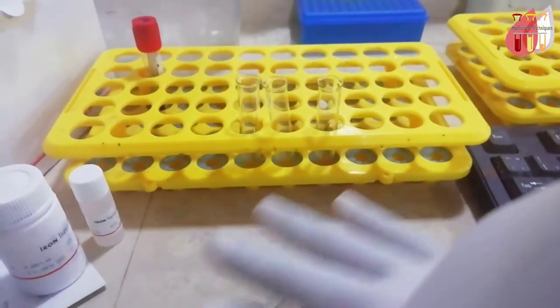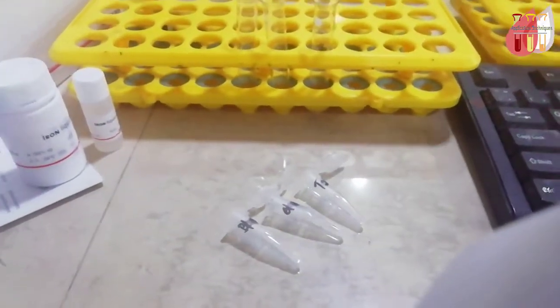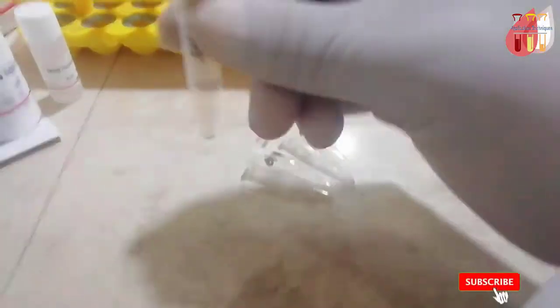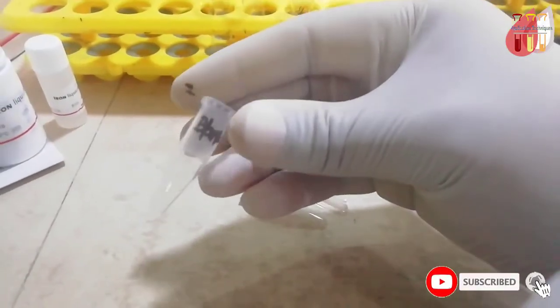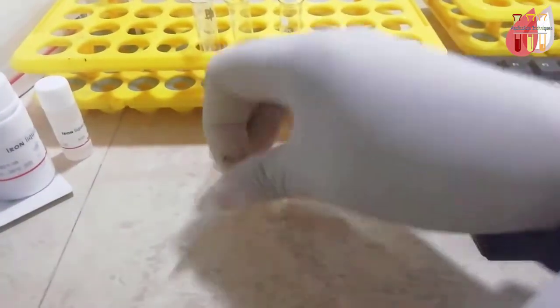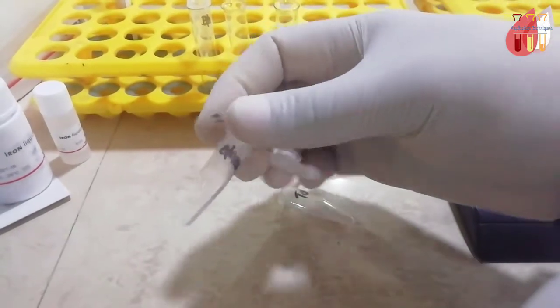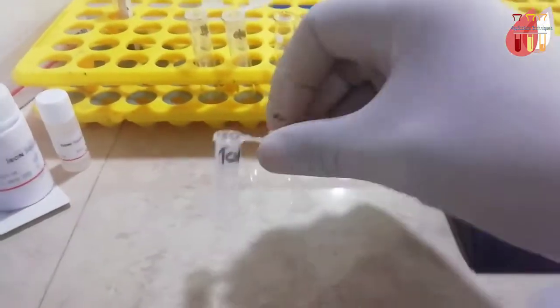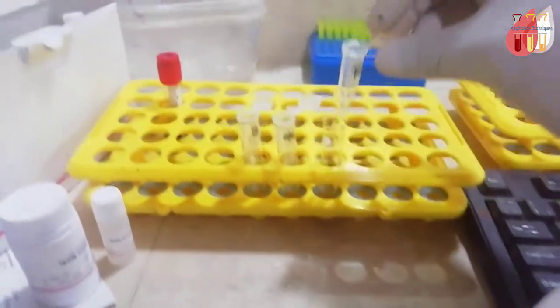Access literature is included. Now we have one 30ml vial and one tube of standard.